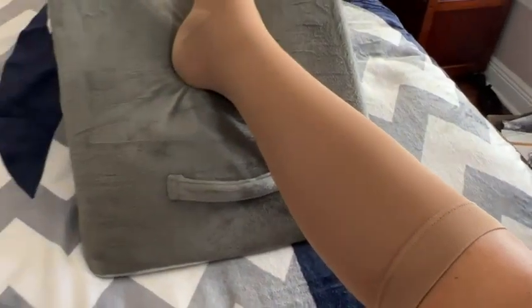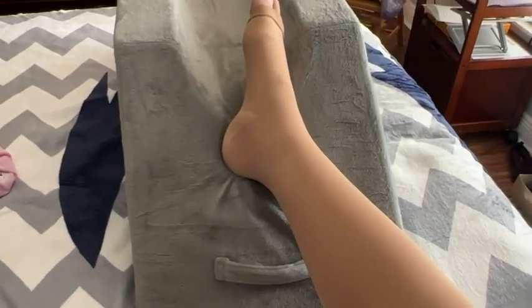It's very even but there is space for my toes. There's room for my heel and the cuff is also very snug but not too tight and the seam is very soft. I'm very pleased with these compression stockings. Wearing them has been comfortable for me and it's giving me that compression that I really need to keep that fluid off my ankle and foot, and that is my point of view.